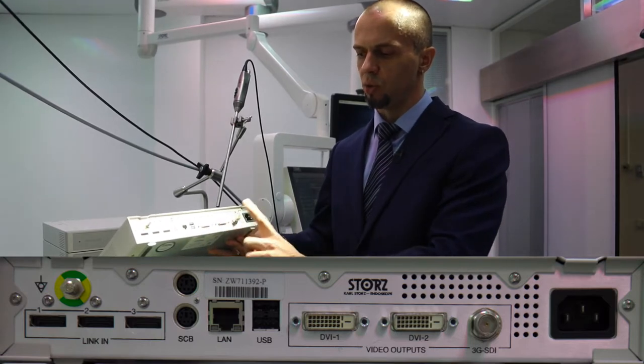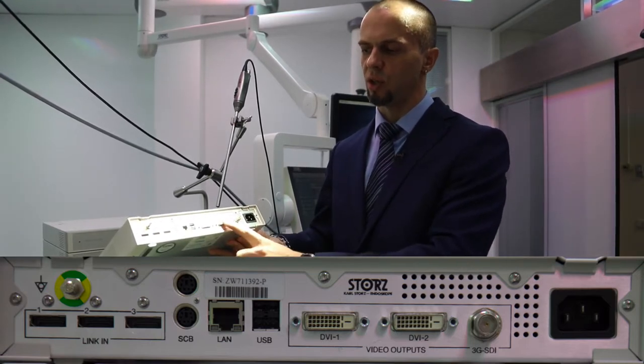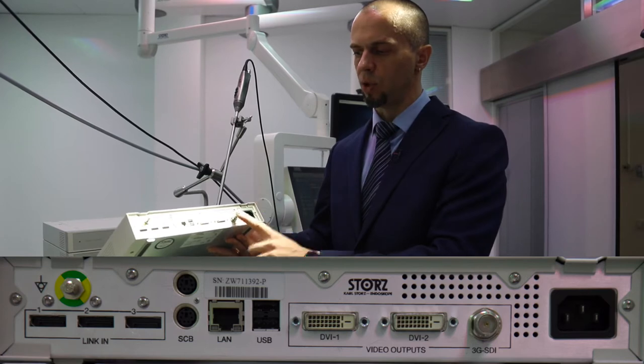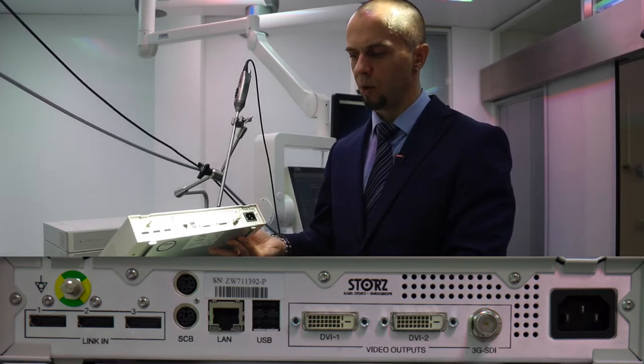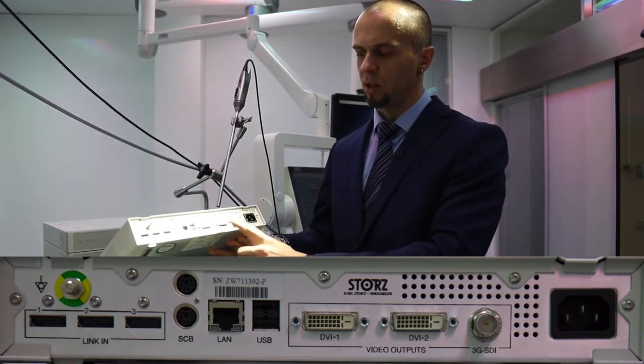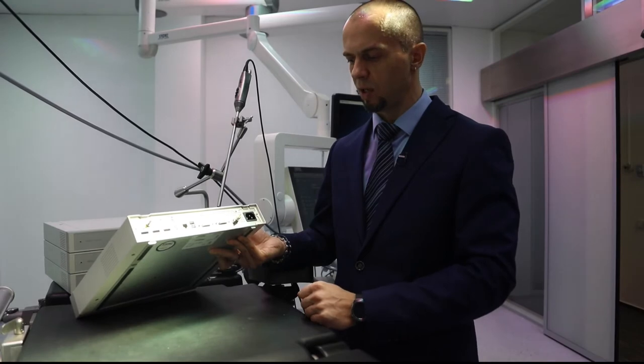То есть три Full HD-выхода на три различных приёмника сигнала: монитор, AIDA, например, конференция — как вариант.